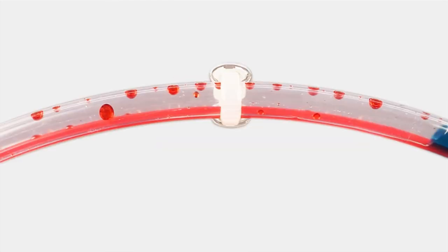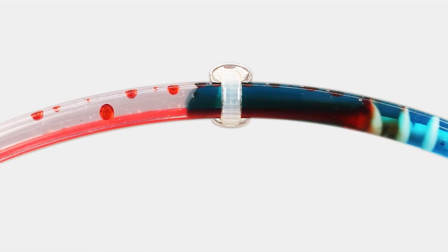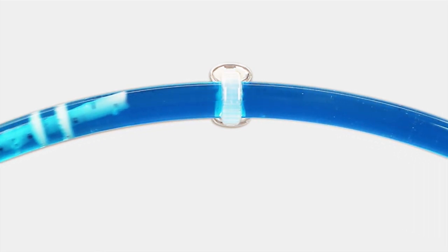The flushing action as the detergent moves through the channel helps remove soil from scratches in damaged lumens. You cannot see if your endoscope channel is clean and you cannot disinfect a dirty channel. Using the pull-through cleaning brush to clean instruments with detergent provides the user with confidence that the channels are clean and that the instrument is ready for high level disinfection.